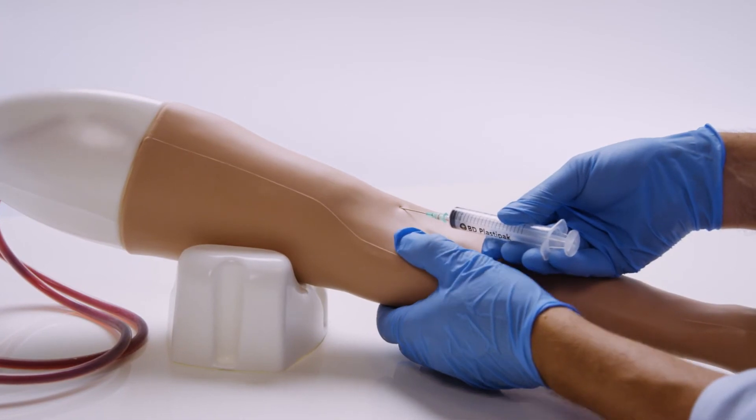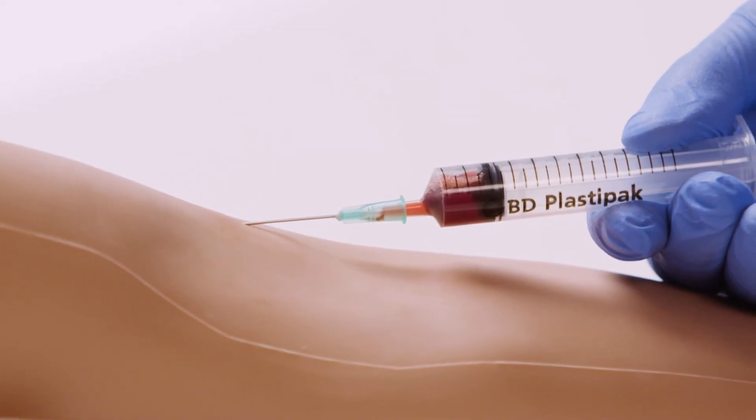The durable model allows for repeated practice, lasting for up to 500 needle insertions.